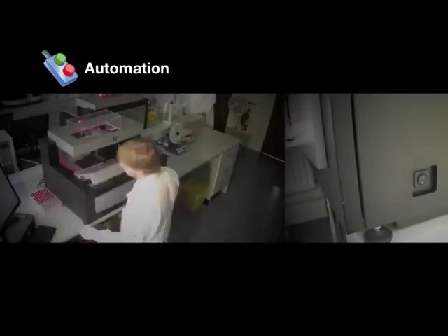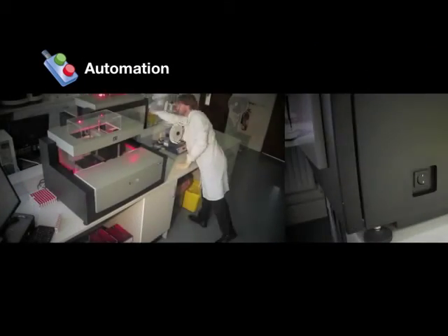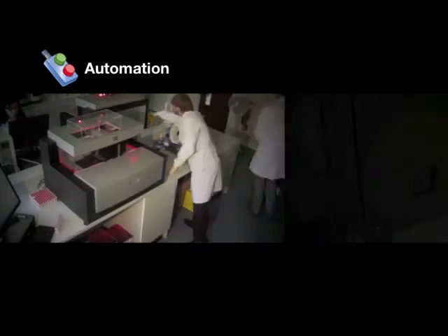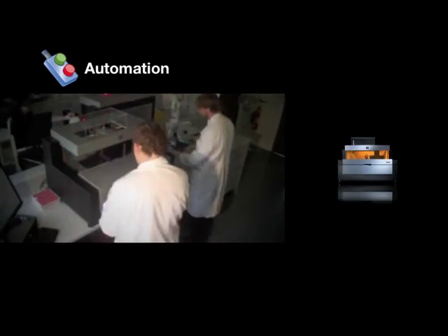Through automation, the V8 delivers an unsurpassed, optimized workflow solution. The V8 automates the maintenance, preparation and decontamination of capillaries for fast and efficient start-up and shutdown.